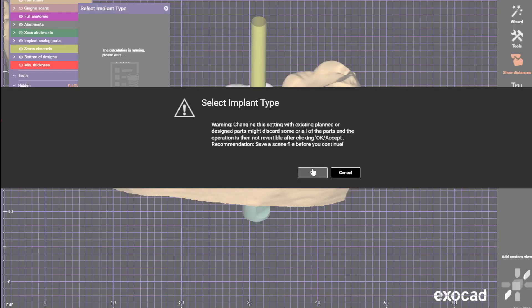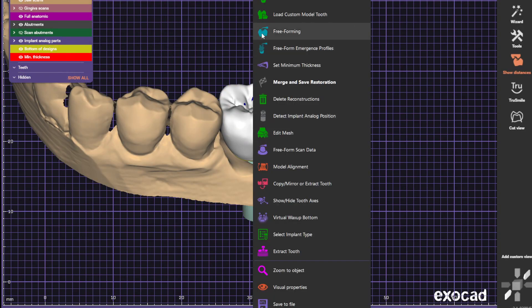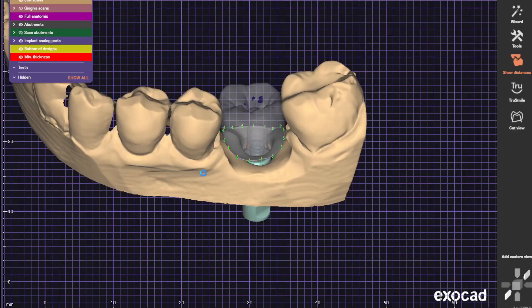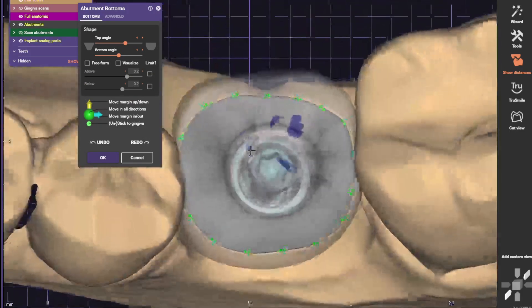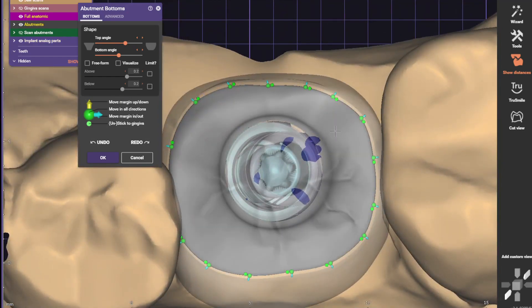Whenever you do this, you gotta make sure to go back and change the abutment bottoms, just an FYI. Again, let's go ahead and delete some of these.